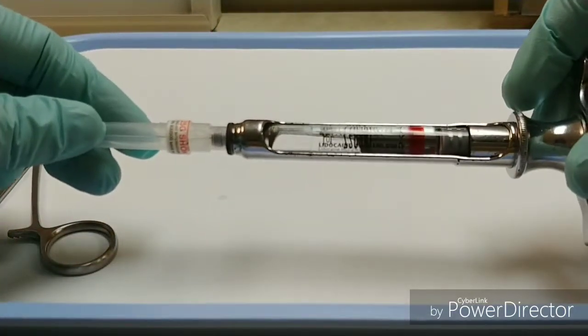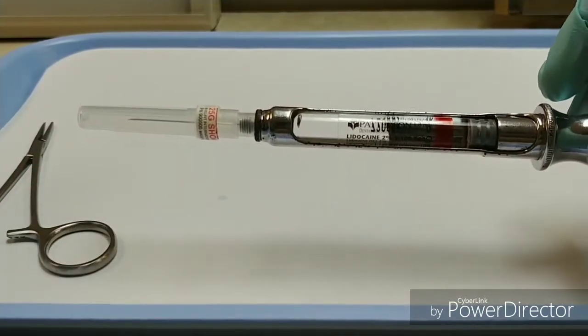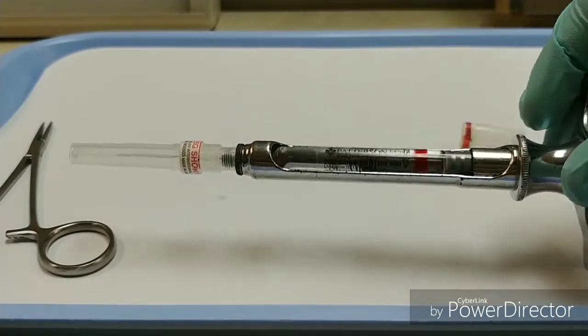And now I've got my harpoon syringe assembled for use. If I had a self-aspirating syringe, the only difference is there's no harpoon to engage, so it's even easier.